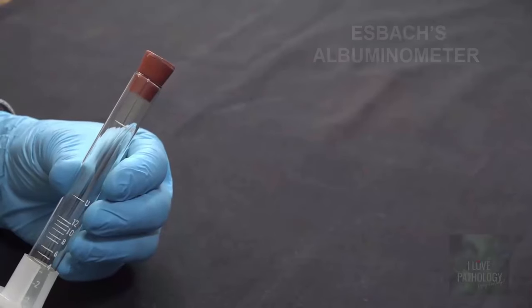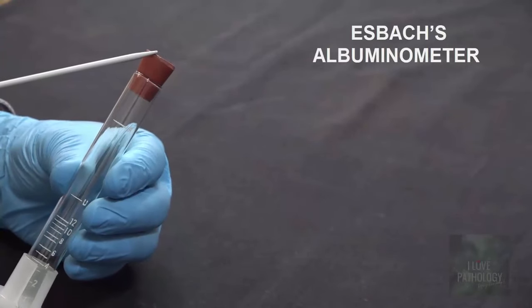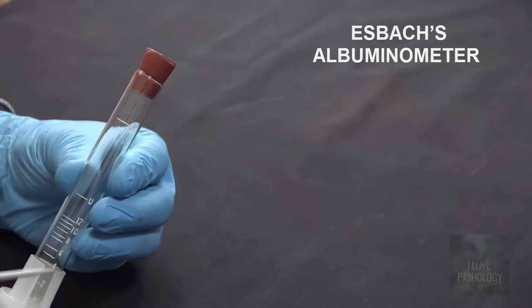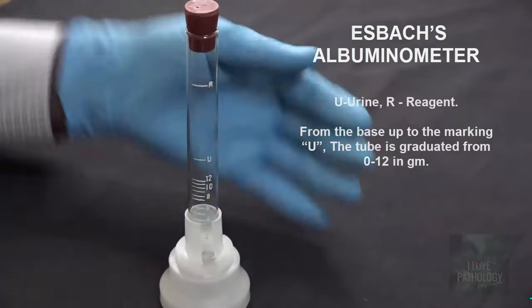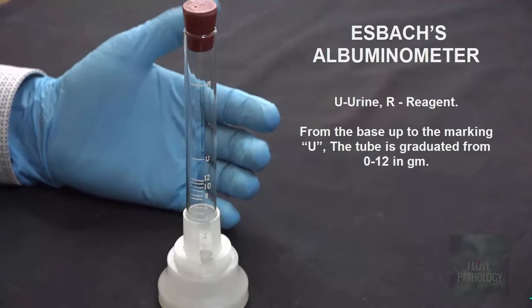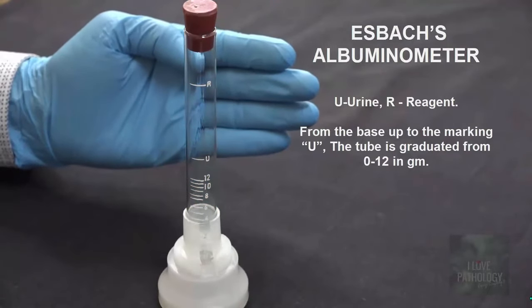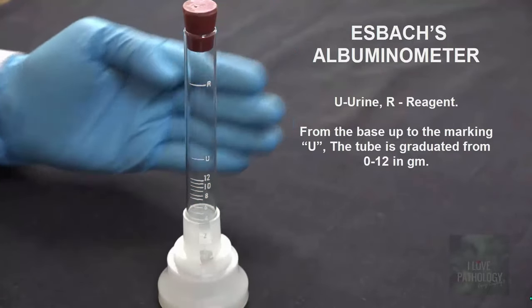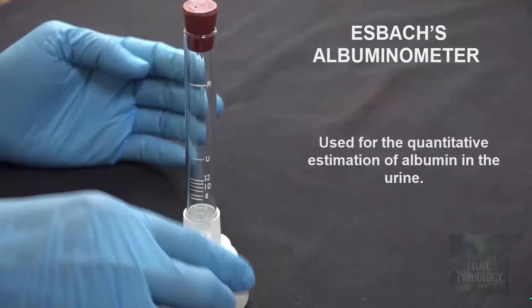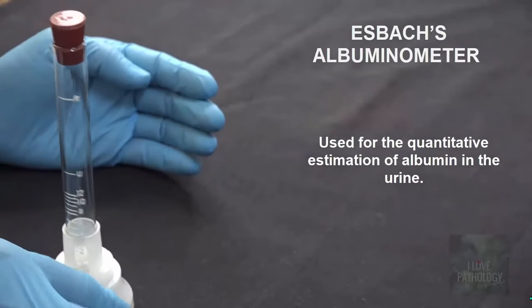This is Esbach's albuminometer. This is a tube with markings on it. The marking R stands for reagent, U stands for urine, and it has graduations from 0 to 12 in grams. The use: it is used to estimate albumin in urine quantitatively.